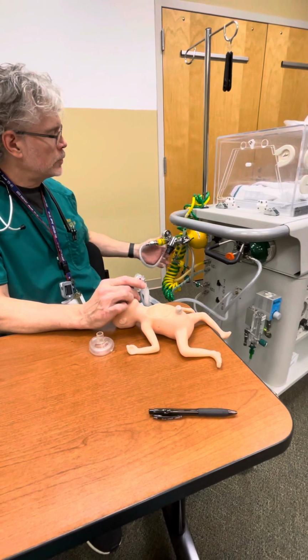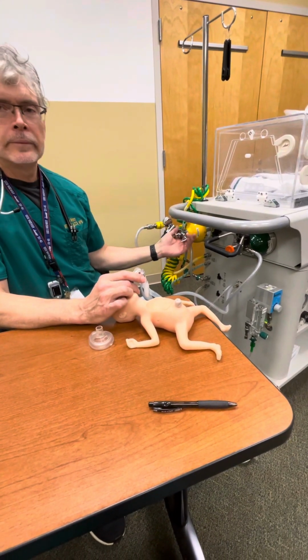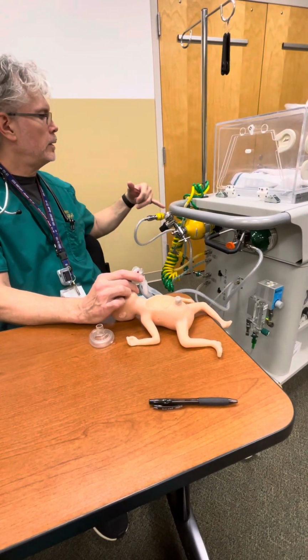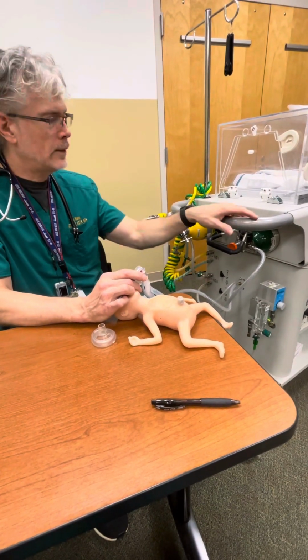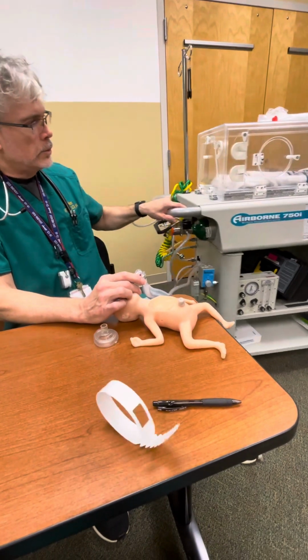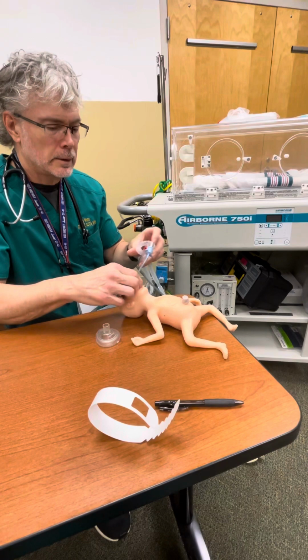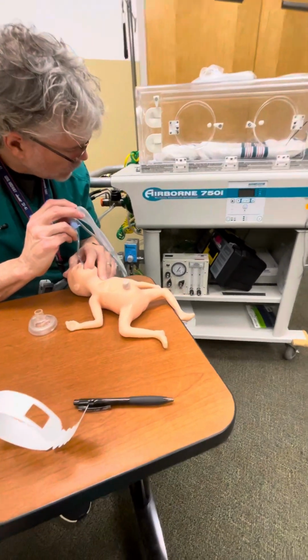I have noticed that these regulators on the oxygen, they leak. So when I do my check, I'll use the key, turn the regulator, get my PSI, and then I'll shut the tank down again and turn both of my valves off. So this little ventilator is pretty much complete right here because you can see everything that it does. Quick little tour.